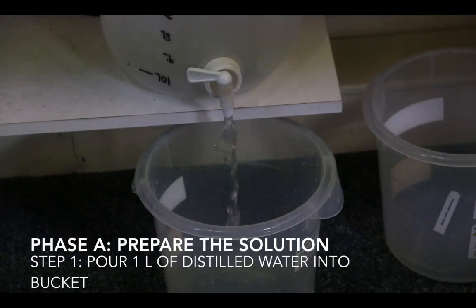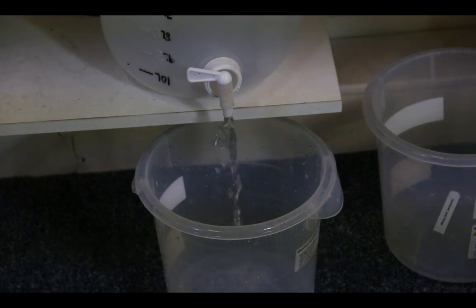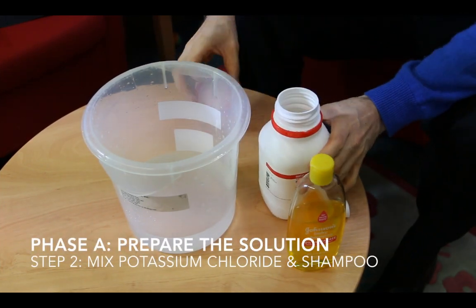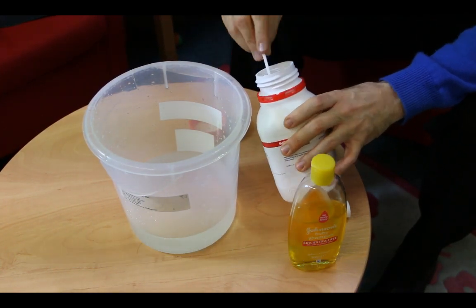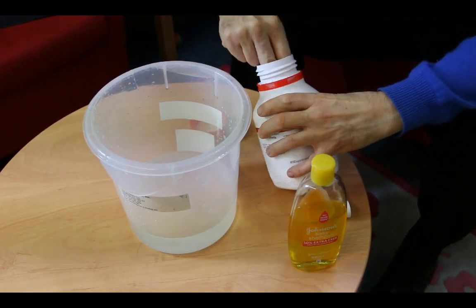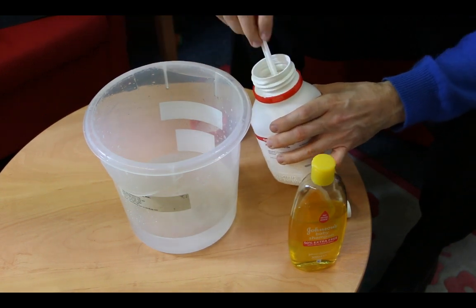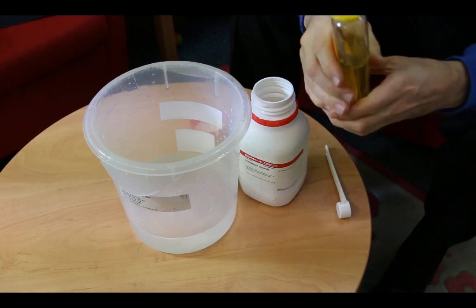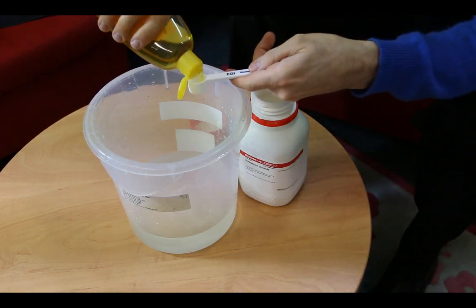The first phase of collecting EEG data is to prepare the solution. Start by filling a bucket with one liter of distilled water. Next, mix in potassium chloride to increase electrical conductance. You're also going to mix in Johnson's baby shampoo to soften the participant's scalp and decrease electrical impedance.